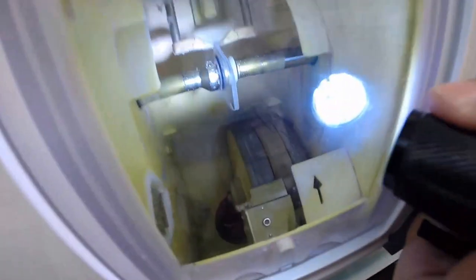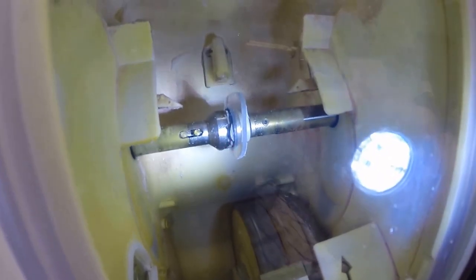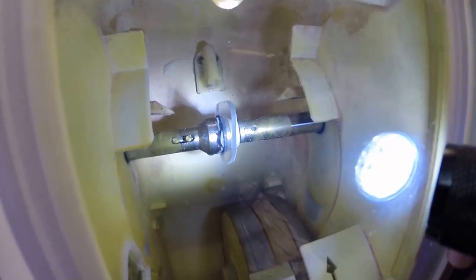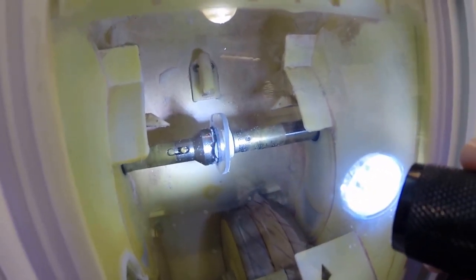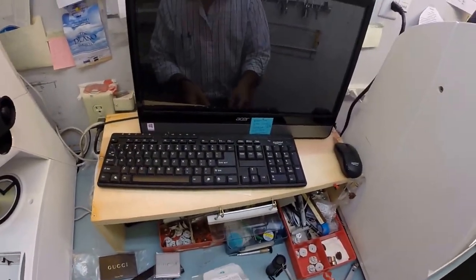One of the great things about polycarb is that it's 40% thinner and lighter than regular plastic. It is virtually unbreakable. Your lenses are bulletproof up to .22 caliber and have both UVA and UVB protection built into the lens. We know what the sun's harmful ultraviolet rays can do to your skin. Well, your eyes are eight times more sensitive than your skin.